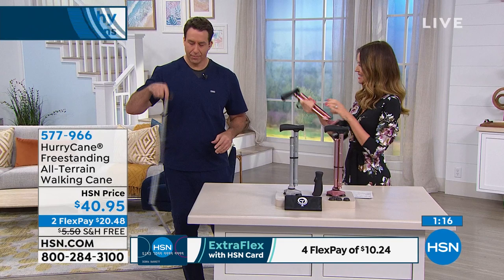This is my very first time using the Hurricane and it was super easy — so you owe it to yourself to get out there and get moving. They always say move it or lose it, right? Move it or lose it. But this is such a great way to be able to do it.